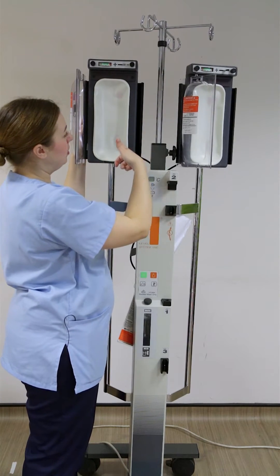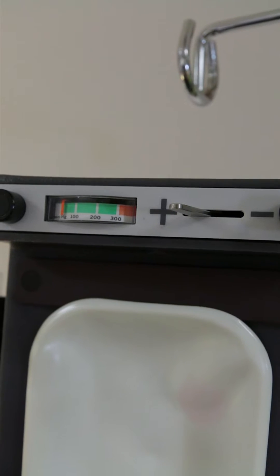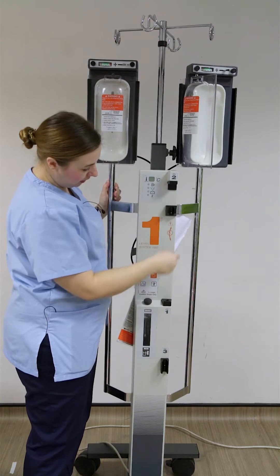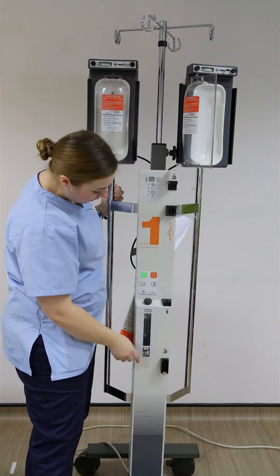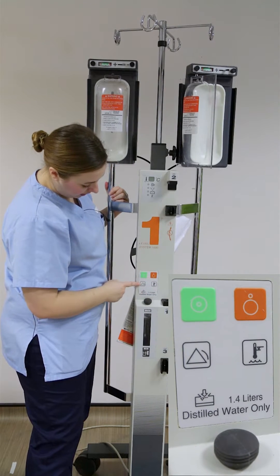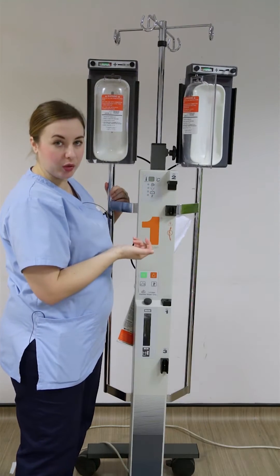When you have the machine switched on and you put your pressure on, you move from the negative to the positive — you just move this bar across and it will come into the green up here, and it fills the back bit and pushes out against your fluid bag. As we move further down, this is where your heat exchanger is going to fit into — that's on your giving set and we'll discuss that in a second — and this is where your air filter is going to fit into. This bit here is your water, and what's going to heat your fluid up as you put it in. You've got your on switch and an off switch. This tests your alarms, and up here you've got your temperature display and indicator lights for if the machine's not working properly.